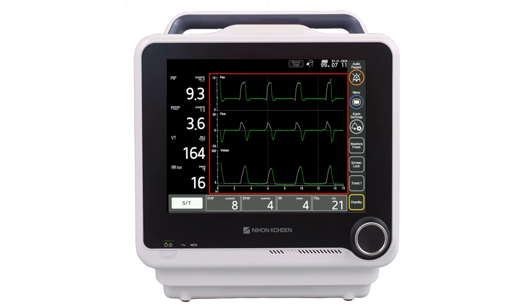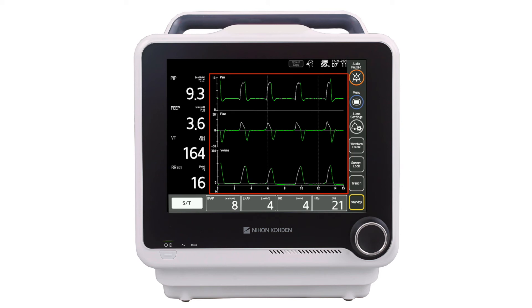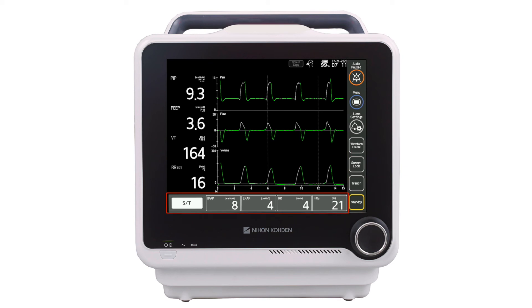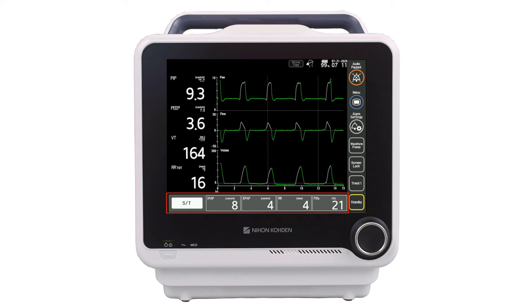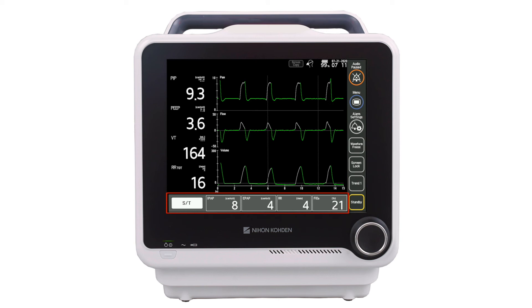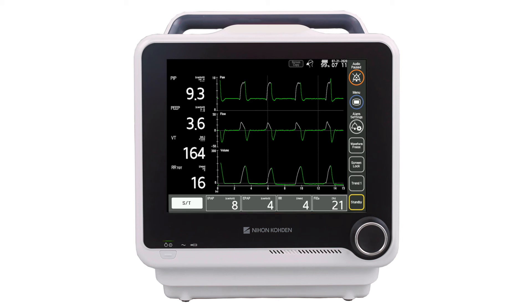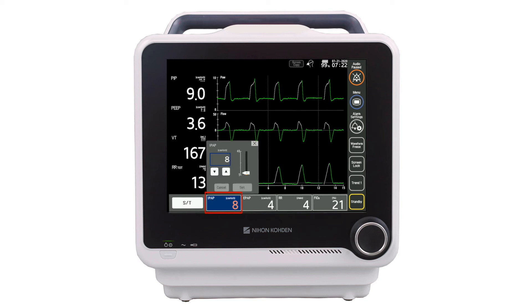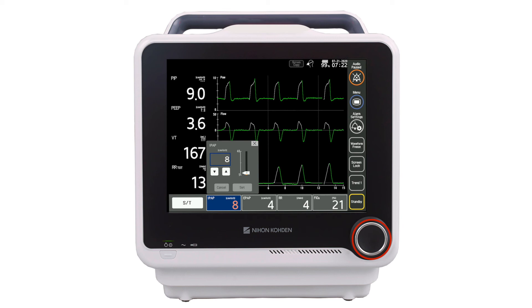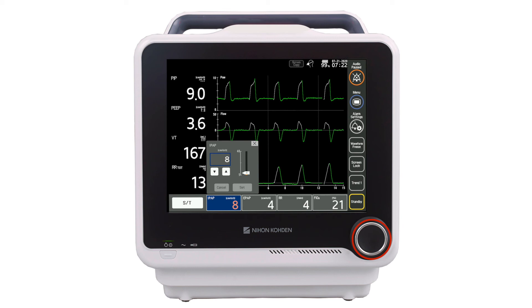The waveform section displays waveforms and loops, and these are also configurable. In the ventilation mode and control settings section, clinicians can change to a different ventilation mode or make changes to a control setting. To change a primary control setting, the clinician selects the setting to be adjusted, makes the adjustment with the encoder knob, then confirms the adjustment by pressing the encoder knob in.